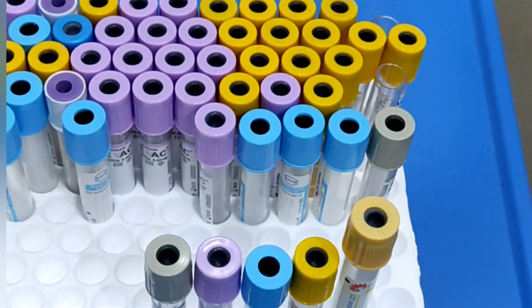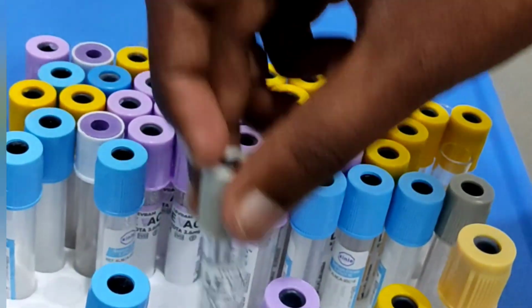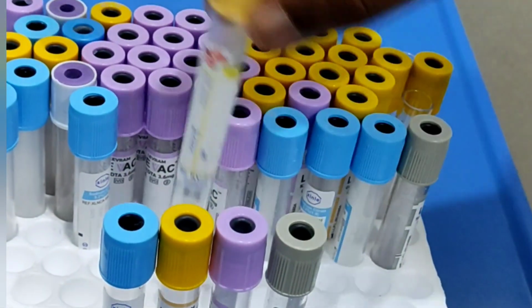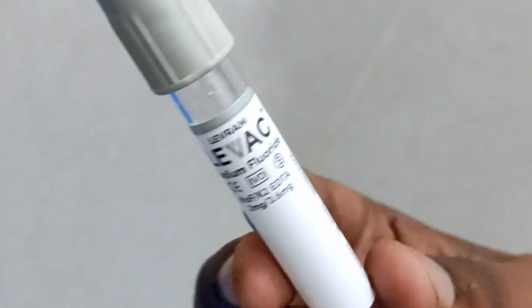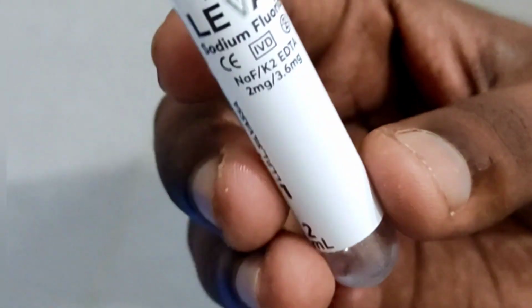While using the test tubes, we must follow some specific instructions. Blood should be aspirated up to the marked position on the label of the tube. When we use a disposable syringe to collect blood, remove the needle from the syringe first and pour the blood slowly to the side wall after opening the cap. And carefully remove the luer adapter, scalp set, needle and so on after collecting blood in order to avoid needle stick injuries. We must discard the needle, scalp set as well as luer adapter after the procedure.